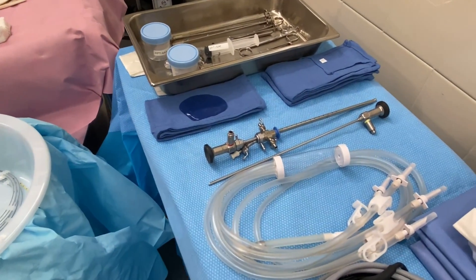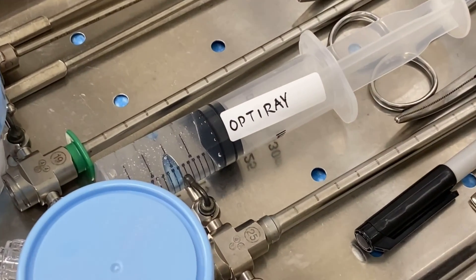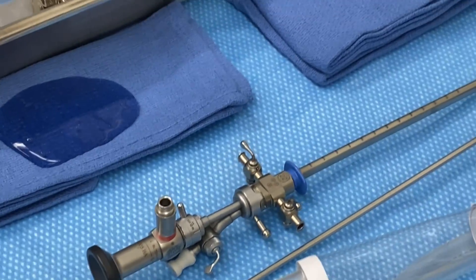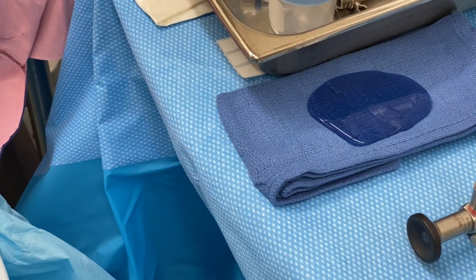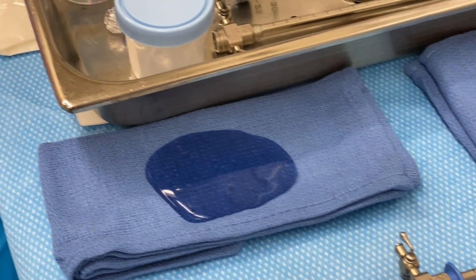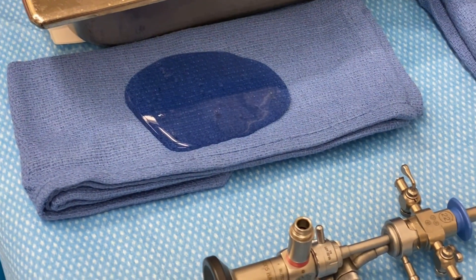In here you also see the medication we have right there — that's Opti-ray. It's similar to Omnipaque or any contrast dye that we use. We shoot it while under x-ray so that we can see the patient's insides.